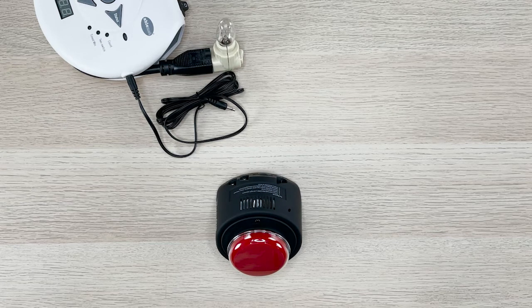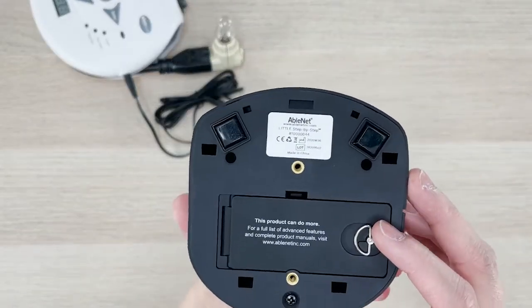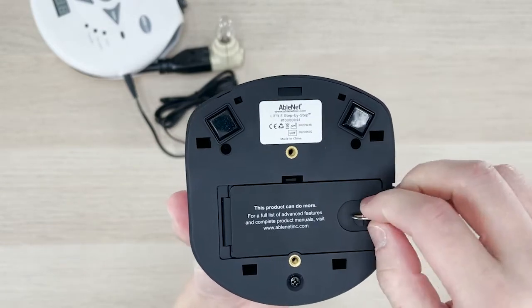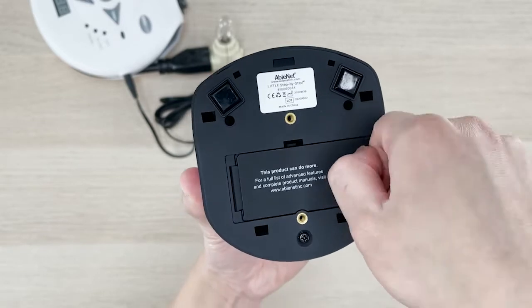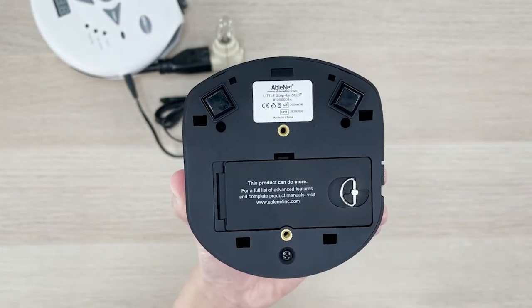First, let's check and make sure that our device has batteries in it. On the bottom side of the device, there is a battery door with a D-shaped latch. Turn the latch counter clockwise to unlatch and open the battery door. Once you have battery in it, you can close it down, turn the latch clockwise, and flatten down to make sure it's flat and out of the way.